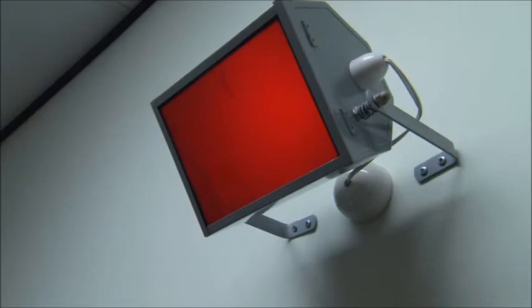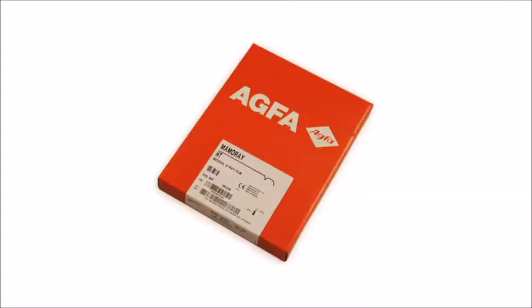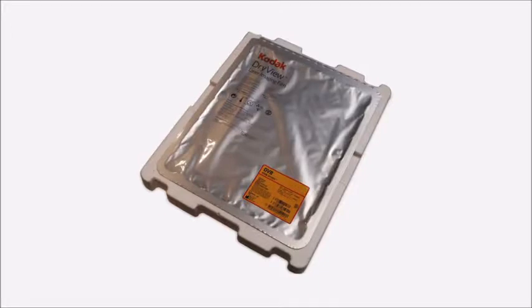Special 15-watt safe lights may be positioned in specific places in the dark room. Safe light filters are also important. There are many types of film for different examinations. Examples include screen film, mammography film, and laser film.